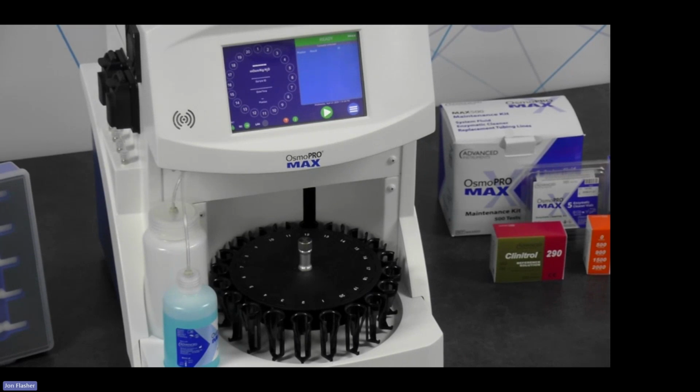And when I say primary sample tubes on, I mean almost any primary sample tube that has serum, urine, or plasma. So if you can imagine your gel tubes or your red top serum tubes, your SSTs, this turntable is specifically made to accommodate a vast variety of heights and widths and volumes of your primary sample tubes for serum, plasma, and urine. And you can go ahead and continuously test up to 20 samples at a time.